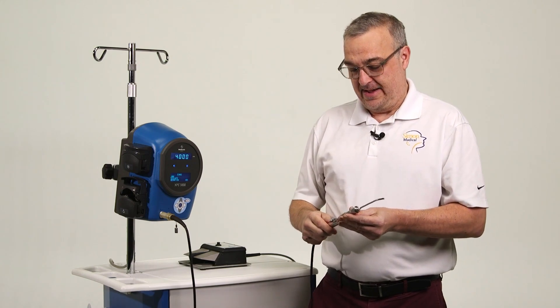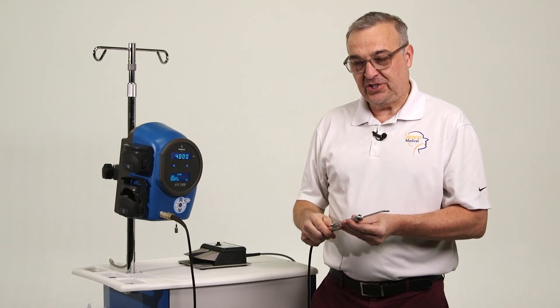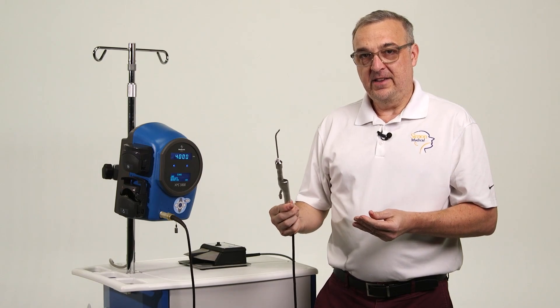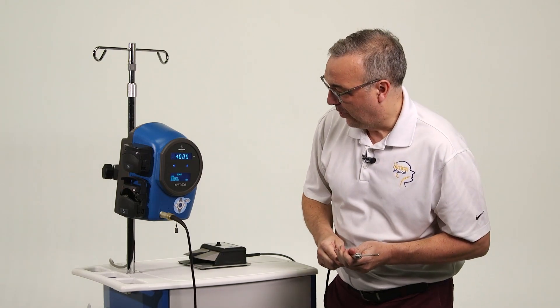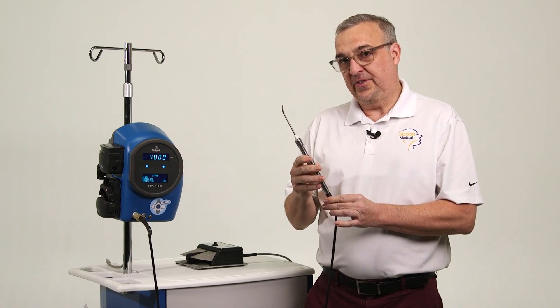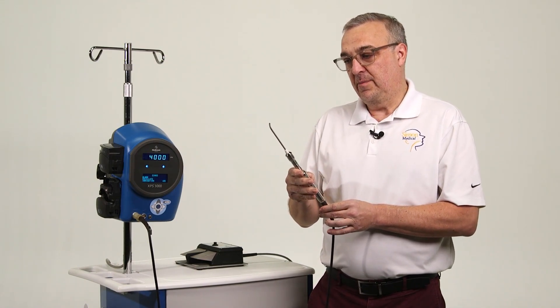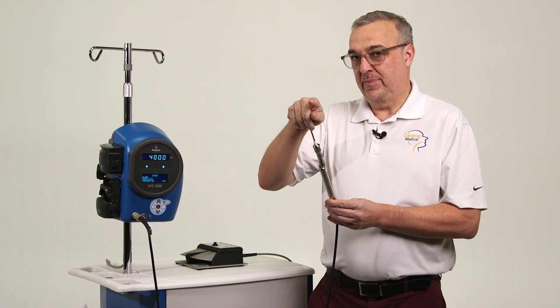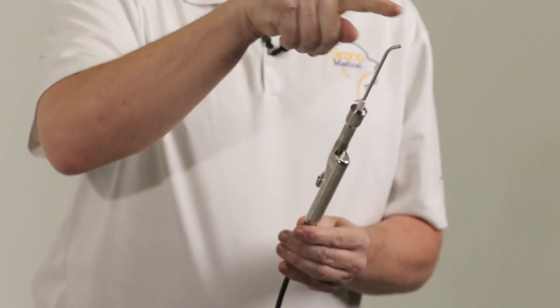And you'll have great suction. You'll have low clogging, and it should work perfectly. The primary use for this is for sinus where the blade will be running on oscillate. That means that blade is going back and forth.